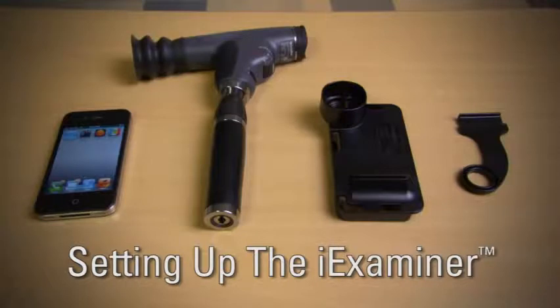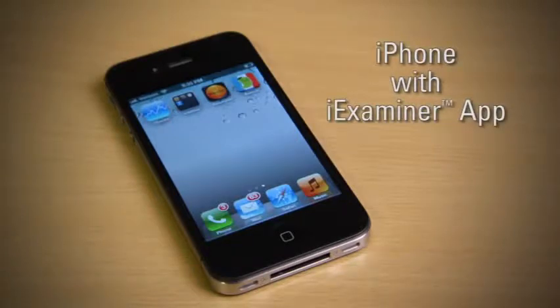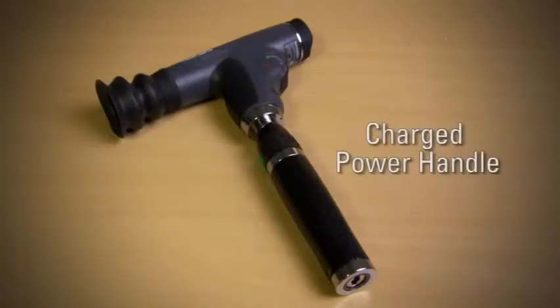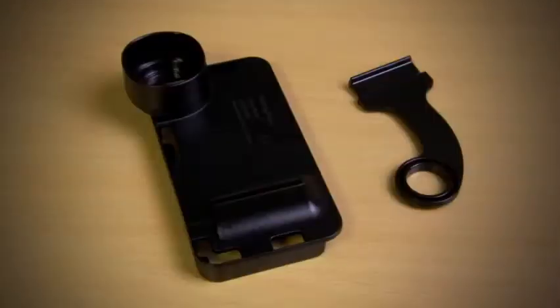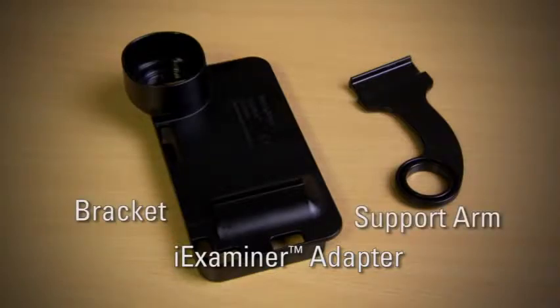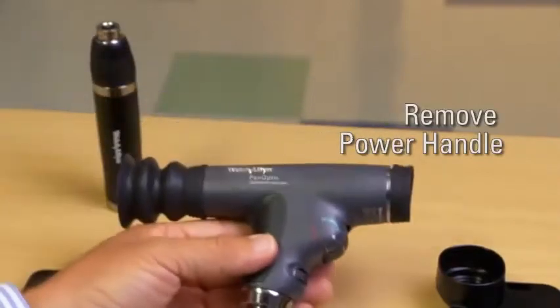Before we begin demonstrating how to use the iExaminer, please be sure you have the following: an Apple iPhone with the iExaminer app installed. This can be downloaded from the Apple App Store. A Welch Allyn PanOptic ophthalmoscope, a charged power handle, and the iExaminer adapter, which consists of two pieces, the bracket and the support arm. To begin, remove the power handle from the PanOptic ophthalmoscope.